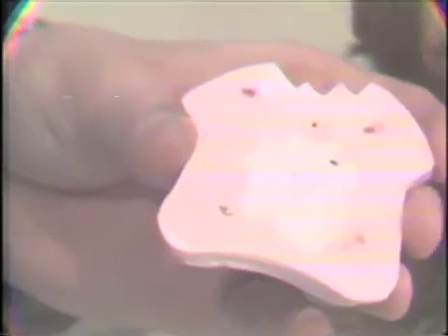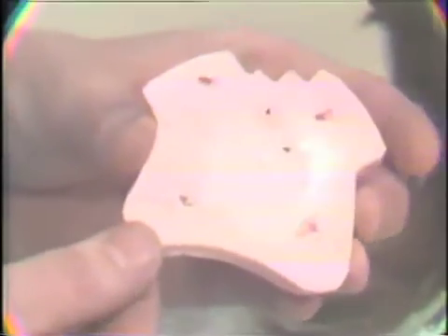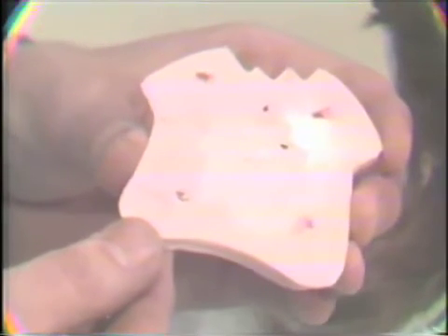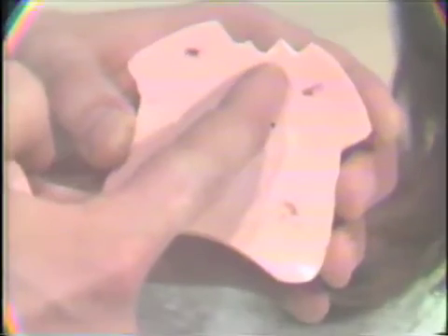Now that we have our clutches trimmed from the lab, you'll notice that our mandibular clutch here is pretty much in the shape of the original clutch former. Again, the reason for this is to completely contain the total stereographic recordings. Notice also that there are some little lugs cut here in the front part of the clutch.